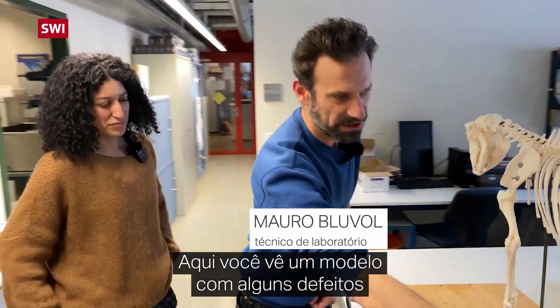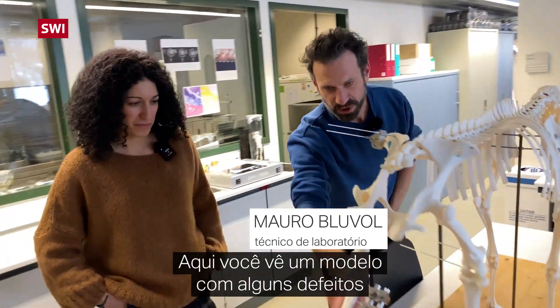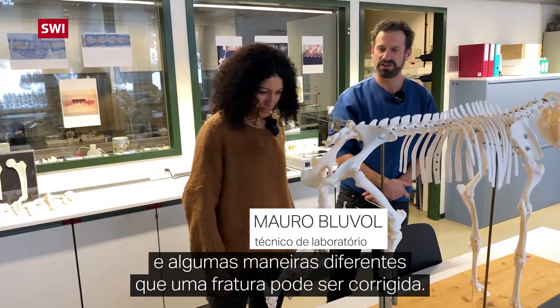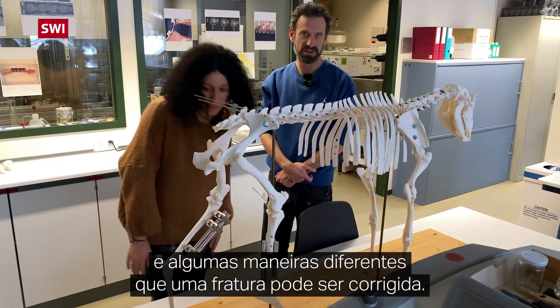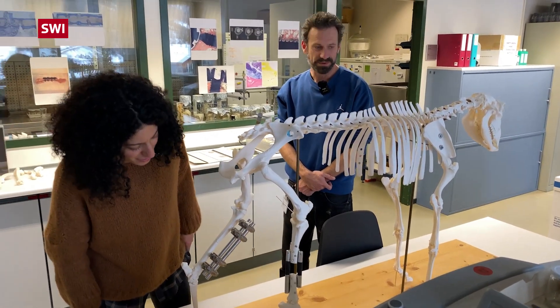Here you see a model with some defects and some different ways how to fix a model fracture.